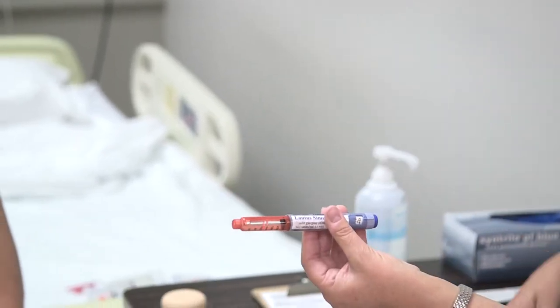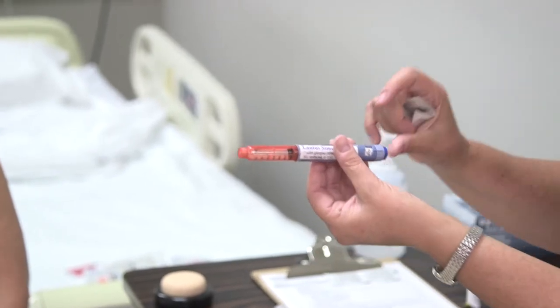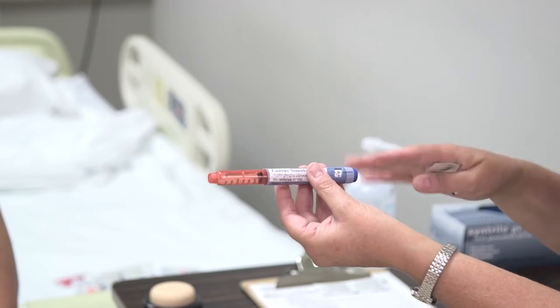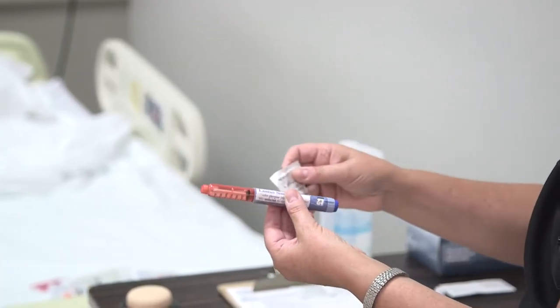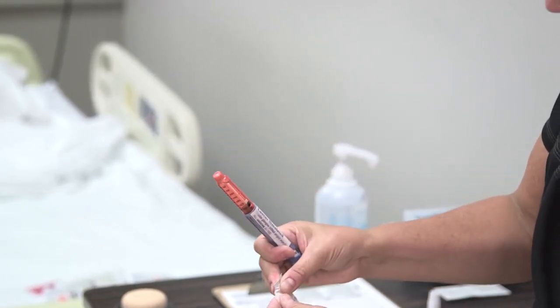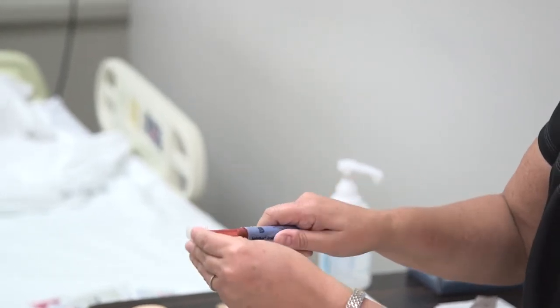Before doing anything, make sure you have the right insulin and check it against your MAR. You're going to set your dose before you do your three checks, because we want to confirm the correct dose so we don't give the wrong amount. Always clean that little port off first — do a good scrub for about 15 seconds.